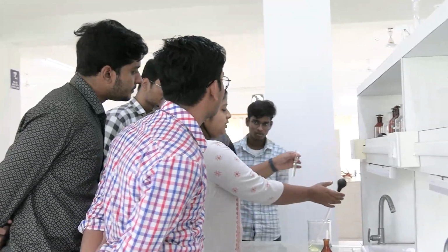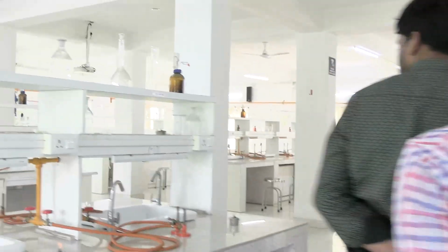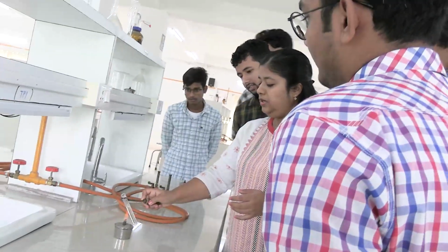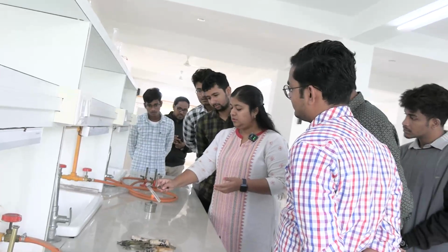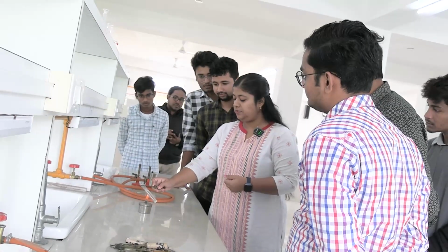Okay, 2/3 of the test tube is filled with sample. Now we will heat the upper 1/3 part and we will get a white coagulum or a cloudiness, flocculum, on the upper part. Okay.